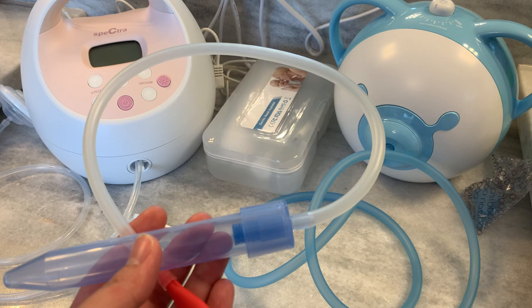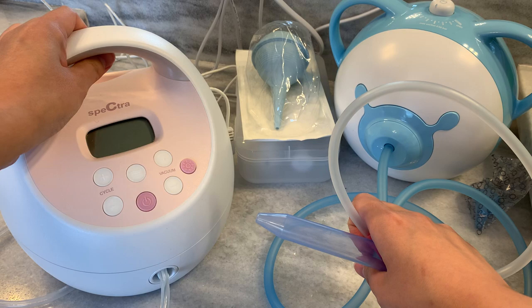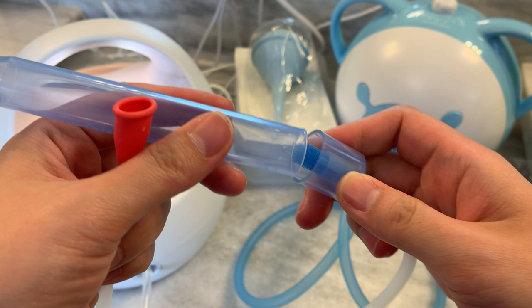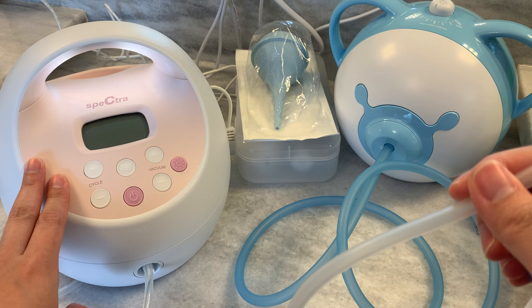I also get tired after sucking three or four times, which gets to a hack — using your breast pump. I have the S2, so I don't know how this works on other pumps. This is totally not going to be recommended by your breast pump company, because even though there is a filter here, I don't know how sanitary this really is. I have two of these: one that functions as a pump and the other as a backup — just in case I need it as a snot machine.